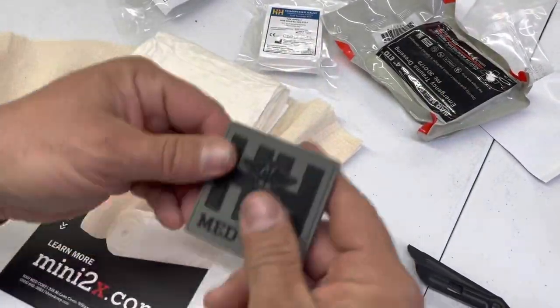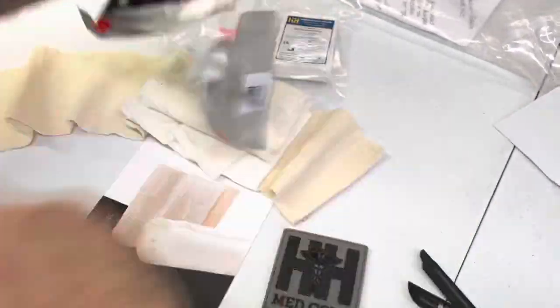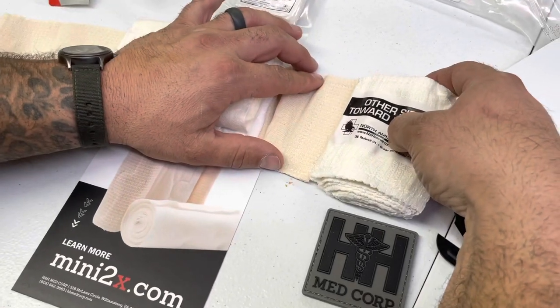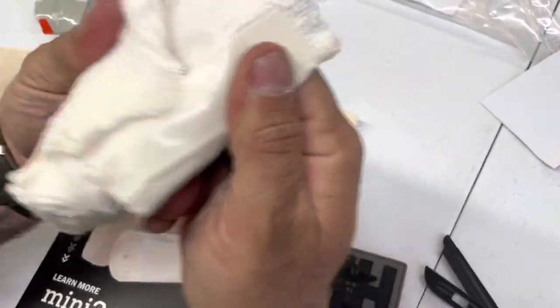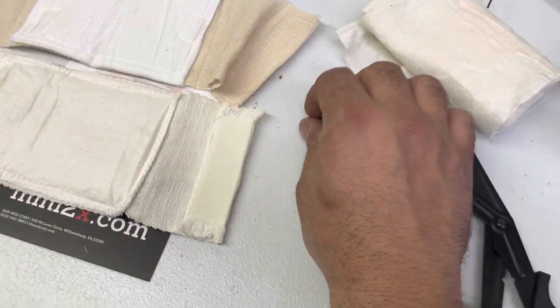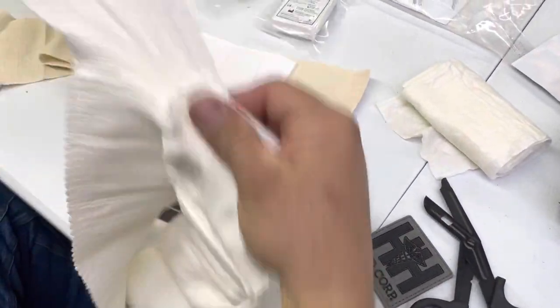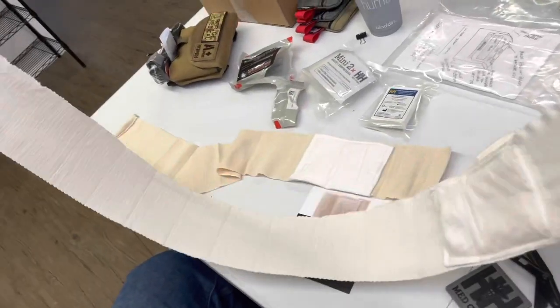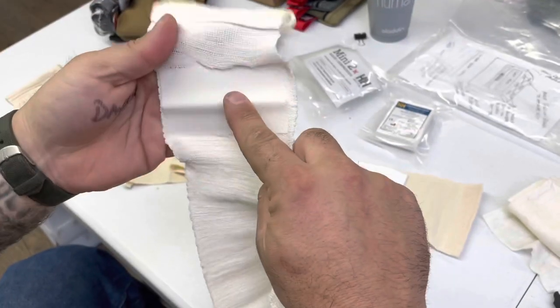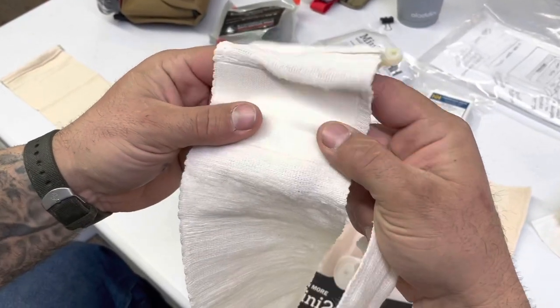That's the H&H MedCorp. Now this is the North American Rescue four-inch. It has tear tabs on either side - 'other side towards wound.' They're the same width. The NAR has about the same size gauze pad, with velcro on the end and the same clips. But one of the things I love about North American Rescue products is this big patch of loop on the end.